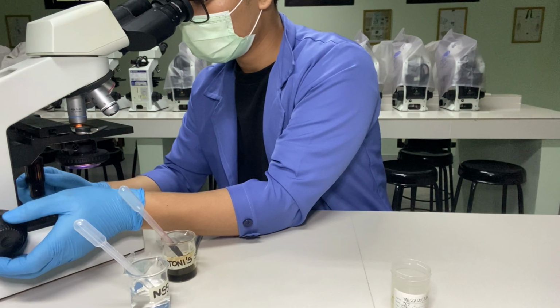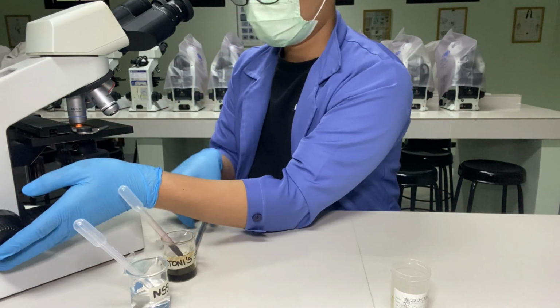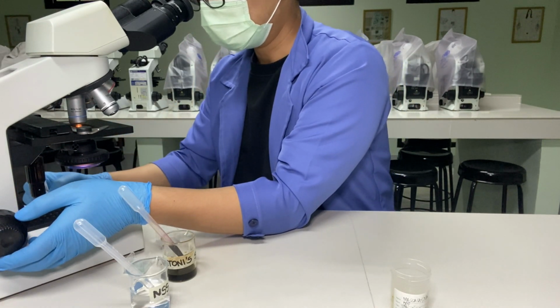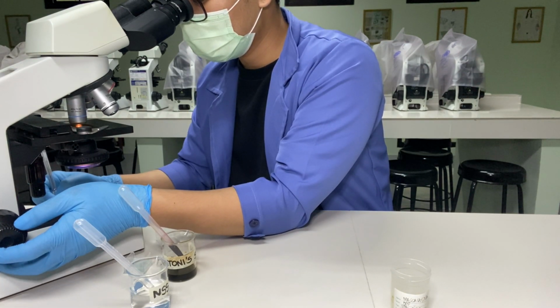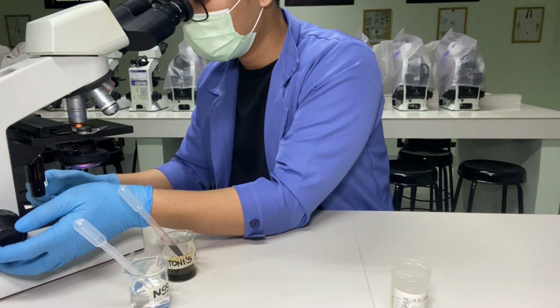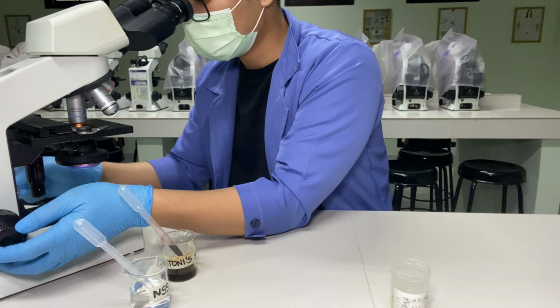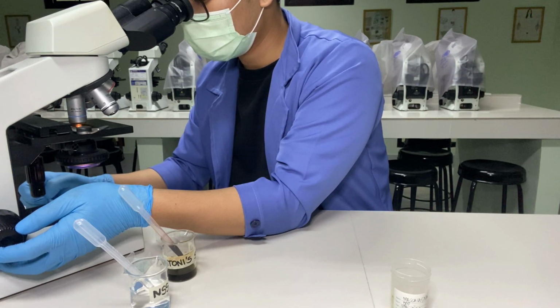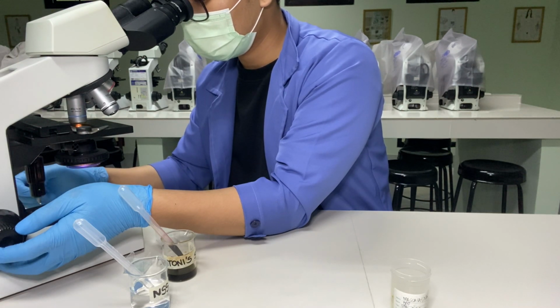For protozoa, a positive result is reported as positive for the name of the protozoa and the stage, and none seen for negative result. You have to take note that a properly prepared smear will allow ordinary newspaper print to be barely legible through the preparation. Too thick a smear will make microscopic observation difficult, while too thin a smear will make examination unsatisfactory.